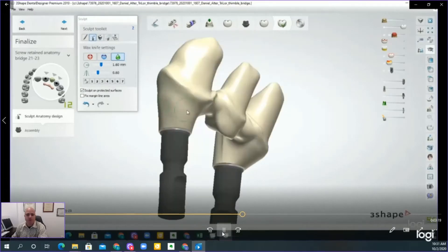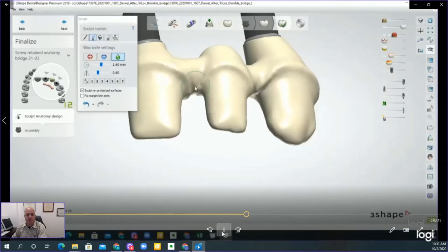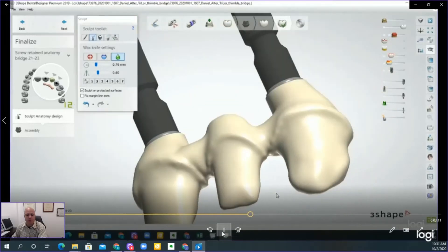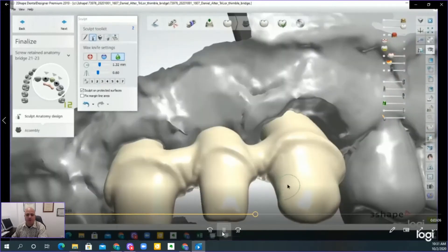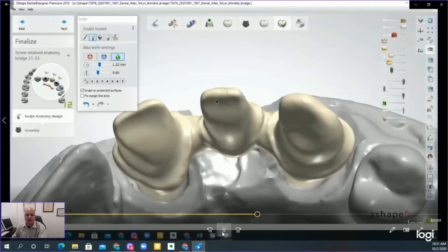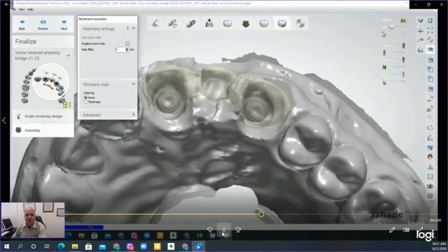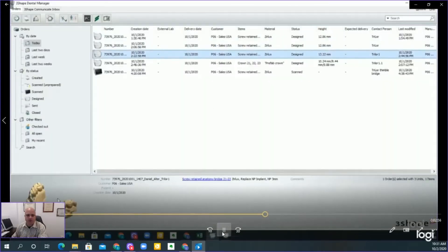Just smooth everything out as much as you can without affecting any of the preparations or the thimbles. Everywhere else, make sure it's smooth so the tools don't get stuck during the milling process. Smooth everything out, making sure everything is parallel. The thimble is already parallel and has an easy draw, but nonetheless, if you're manipulating anything, just make sure it's not adversely affected.